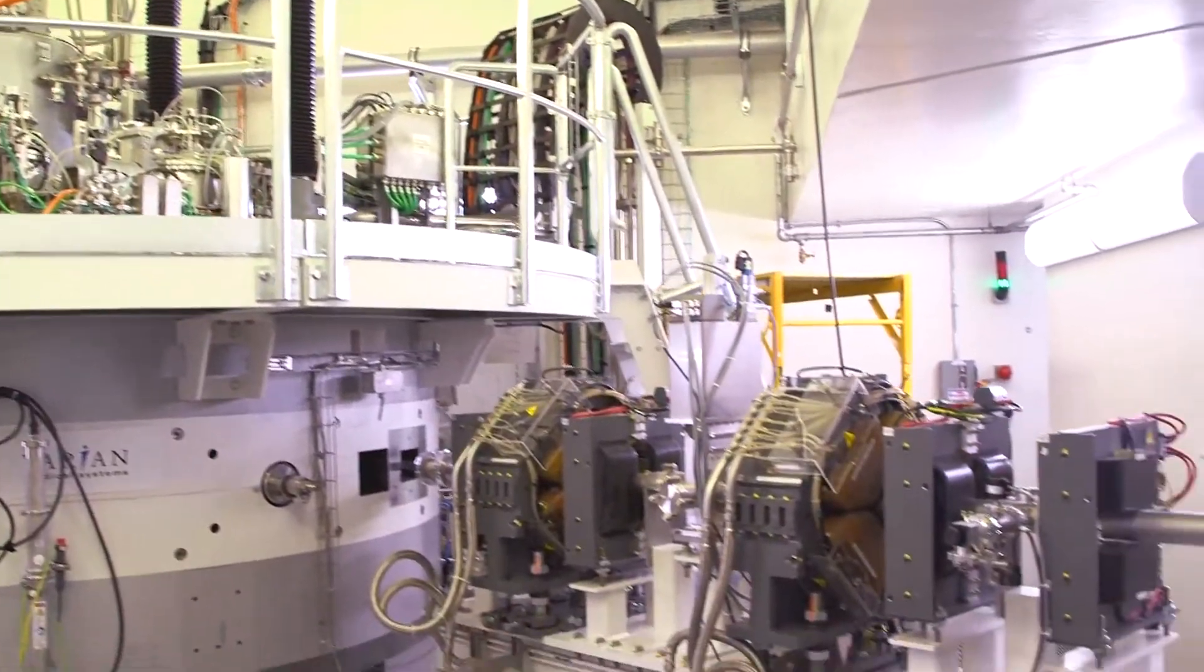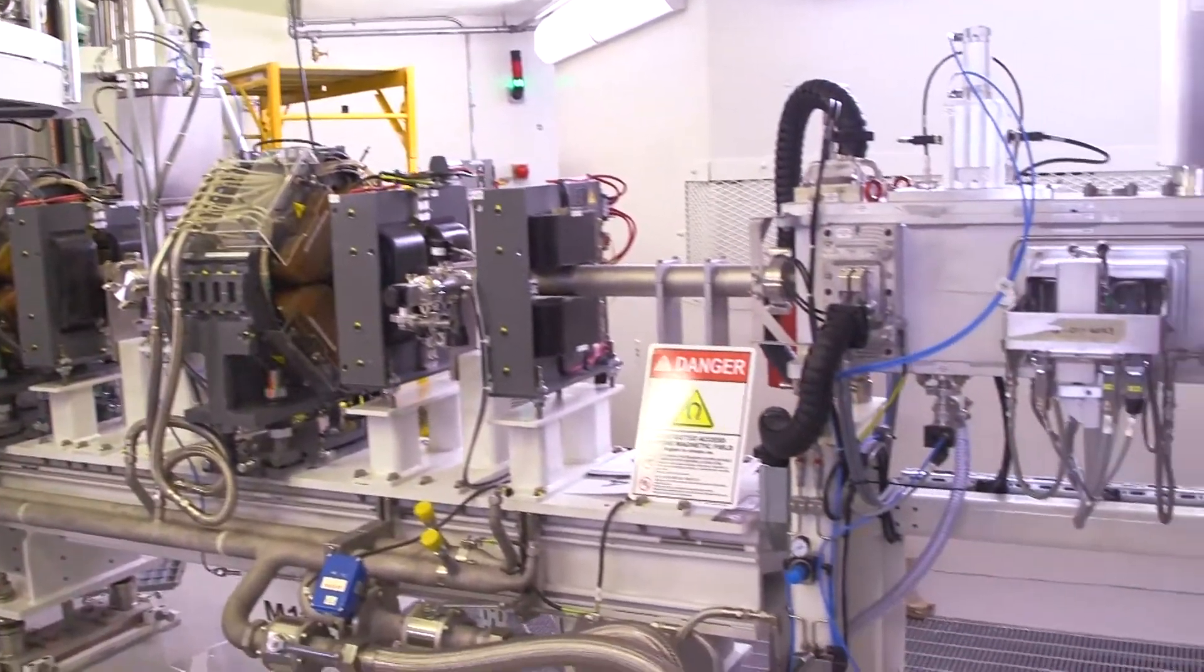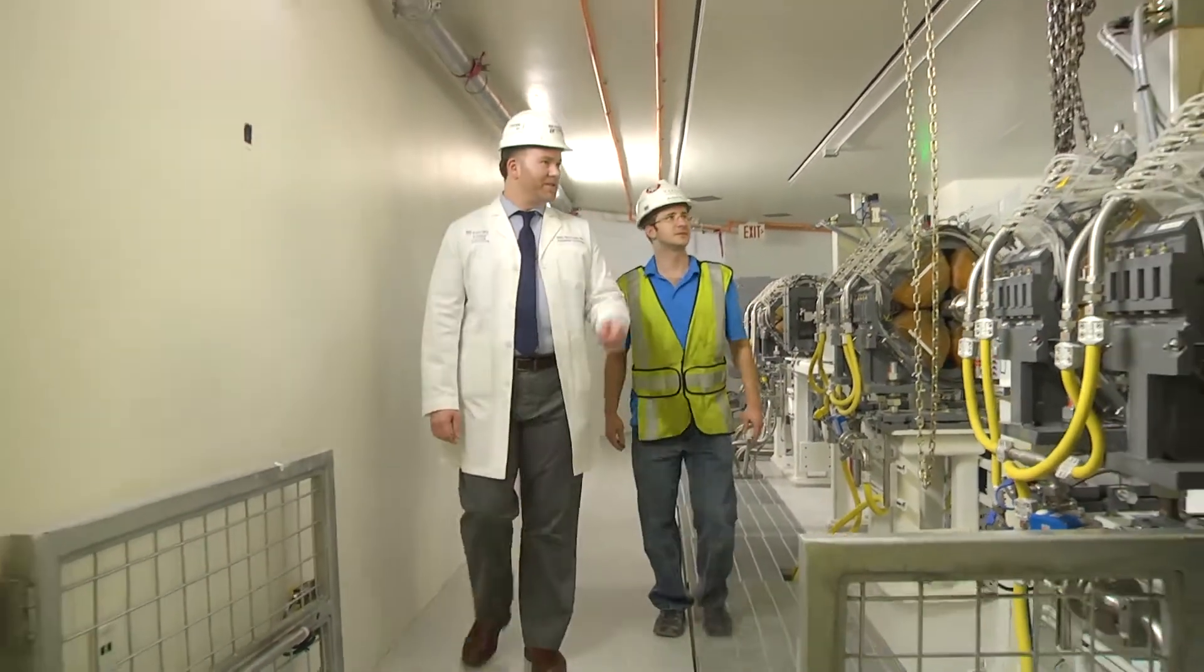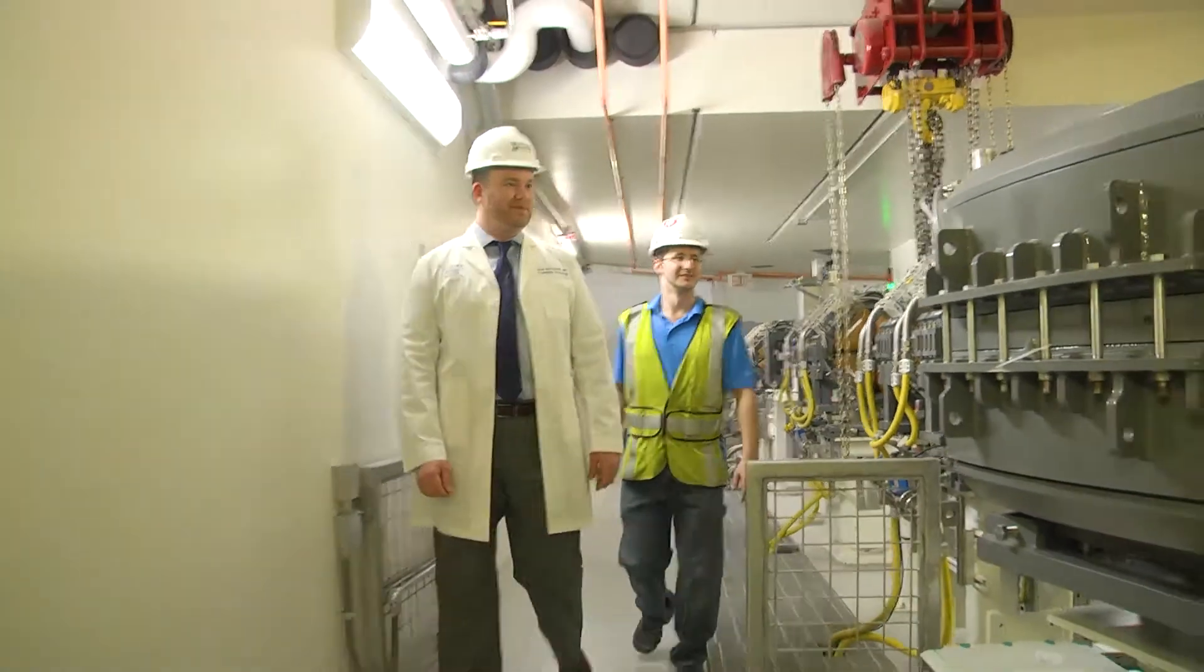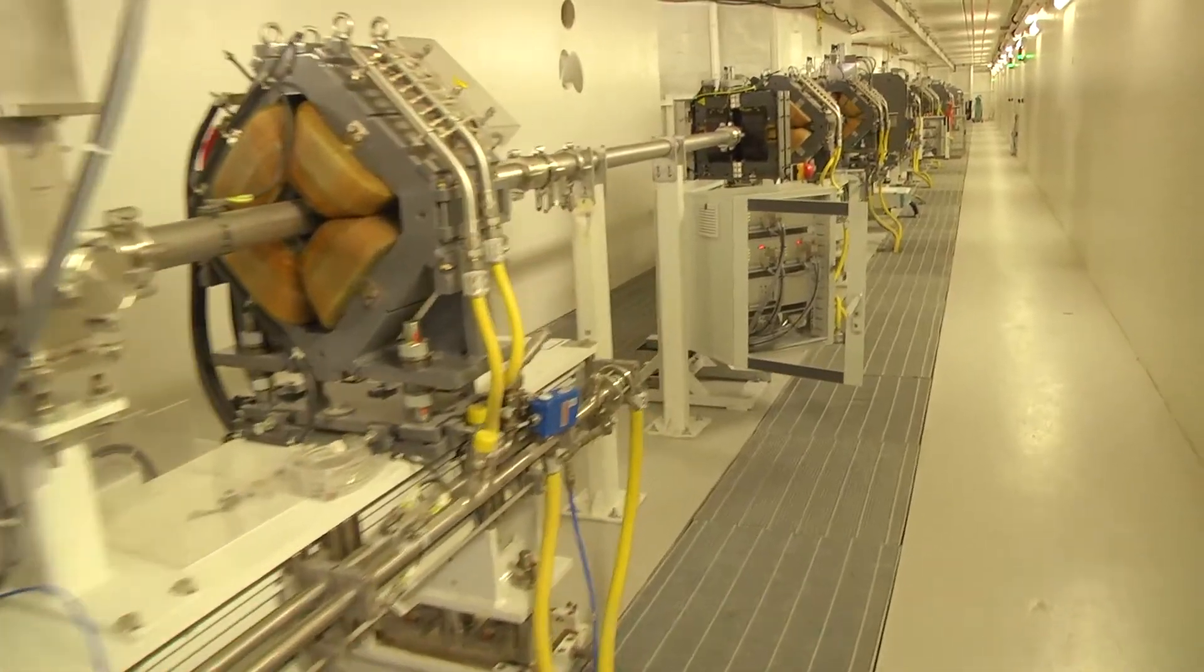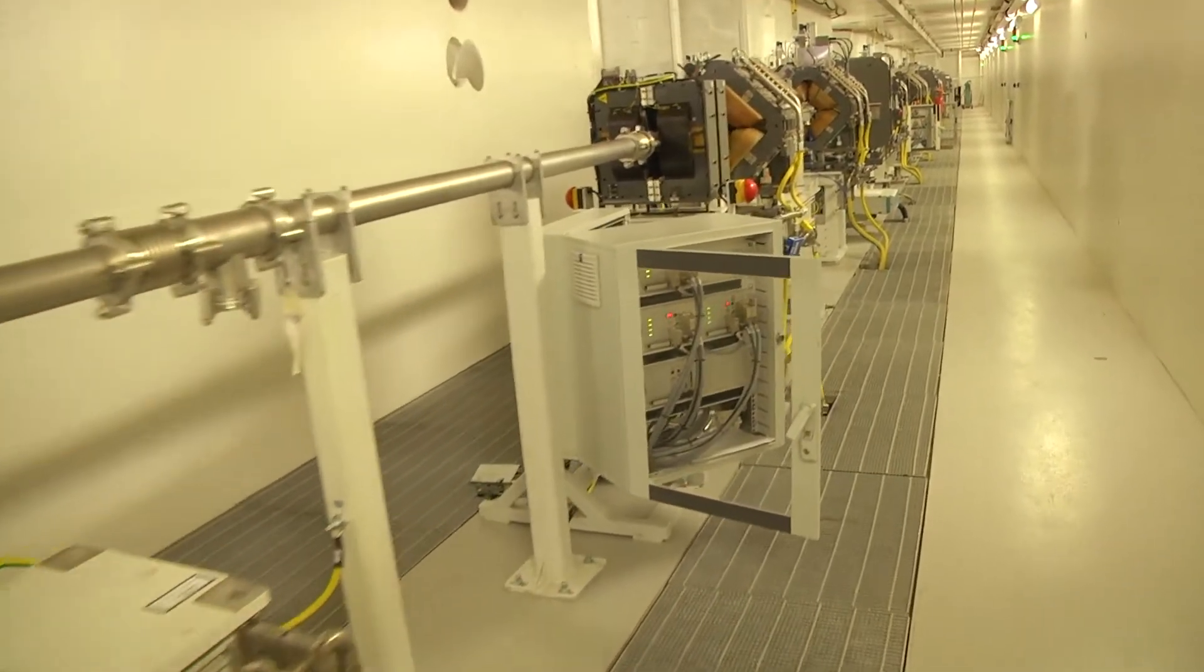This cyclotron accelerates protons to nearly two-thirds the speed of light, giving them an energy of 245 MeV, which is enough energy for the protons to penetrate about 36 centimeters, or about 14 inches, into the body to reach any tumor location.